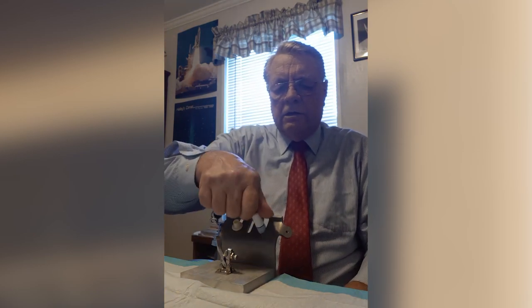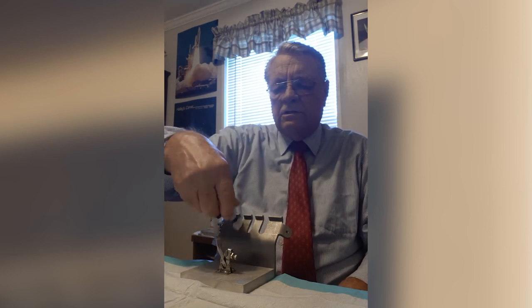Now we take the patient valve, put that in here, remove the mini cap, take this, put it in here — nice and secure and we're done.